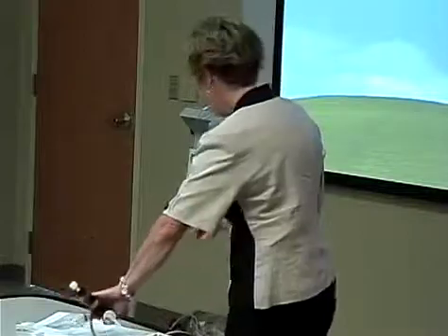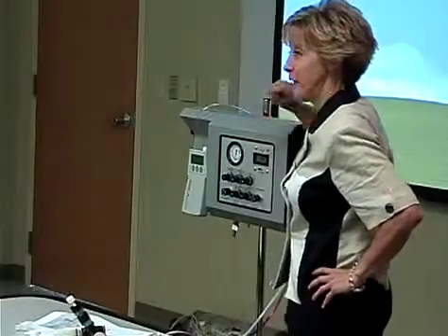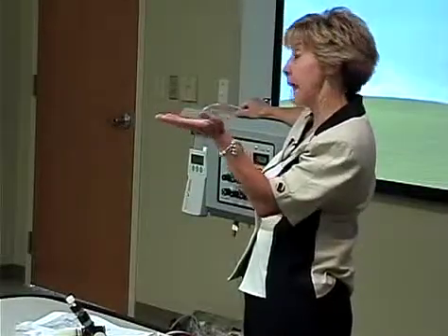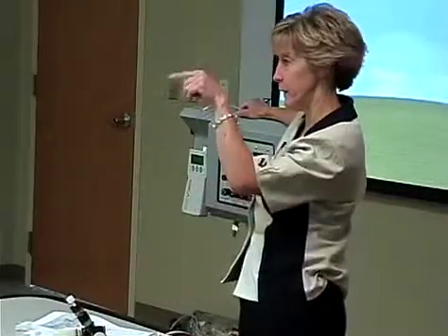So, how do you chart there when you make changes? Yeah, that's a good one, isn't it? This is what we do. You can certainly chart your mean, and you can chart your frequency, but that amplitude kind of throws people. And so we will chart adequate chest wiggle or good bounce, and then if we get a blood gas, let's say your CO2 is 54, and you know you're going to have to go up probably a little bit on your amplitude, we put an arrow, increased amplitude.